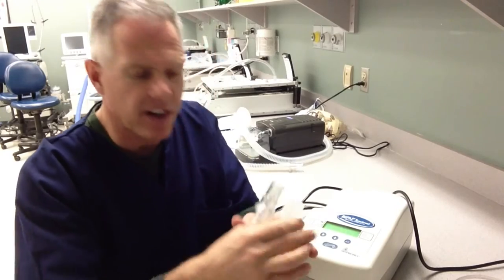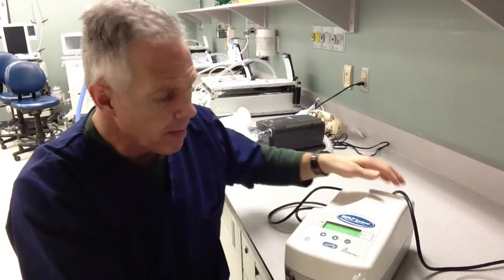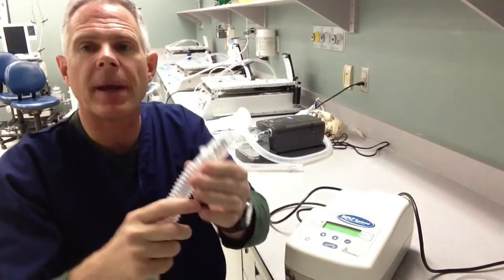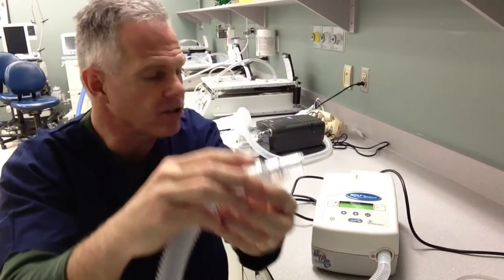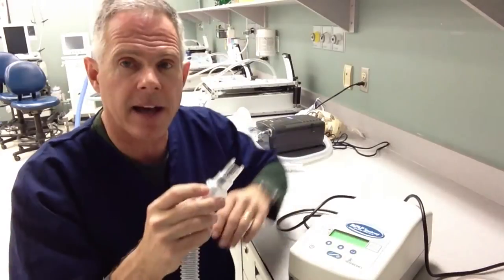The circuit is very simple. Just like with our other ones, we have a nice little whisper swivel here to make sure that the flow of gas delivered to our patient isn't being rebreathed. The circuit plugs in here and basically goes directly to either our full face mask or our nasal mask.